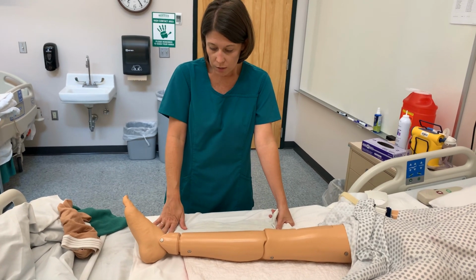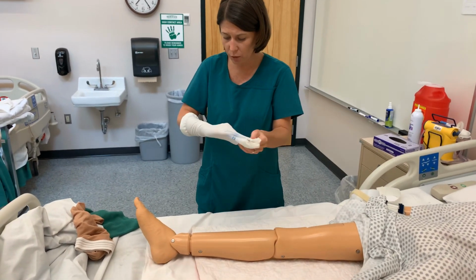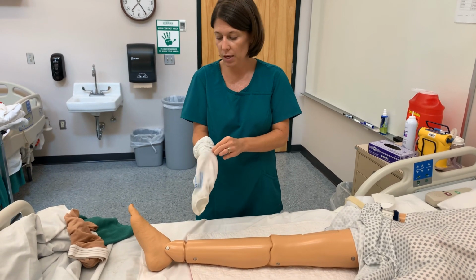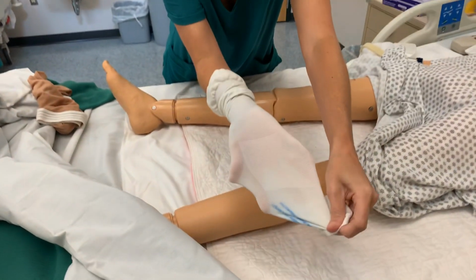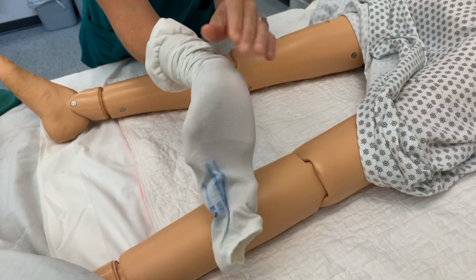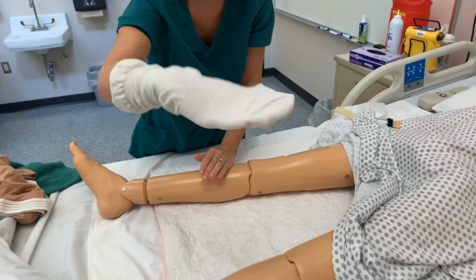So when I go to put this on, one of the things I want to show you is, I was working with someone one time and my patient care tech said, oh, the opening of the anti-embolism stocking always has to be at the top of the toes. No. You'll notice here for this particular stocking, can you see where that stitching looks a little different? There's a square area. That's the heel for this particular brand. So pretend that my hand's a heel. If that's a heel, look where the opening is. It's at the bottom of the foot.